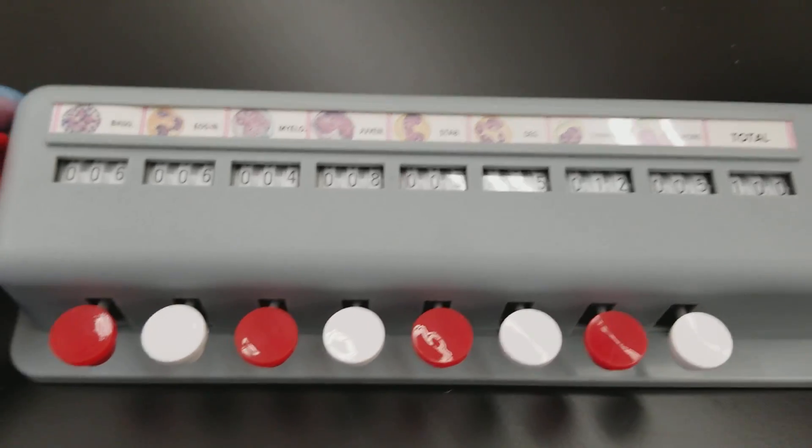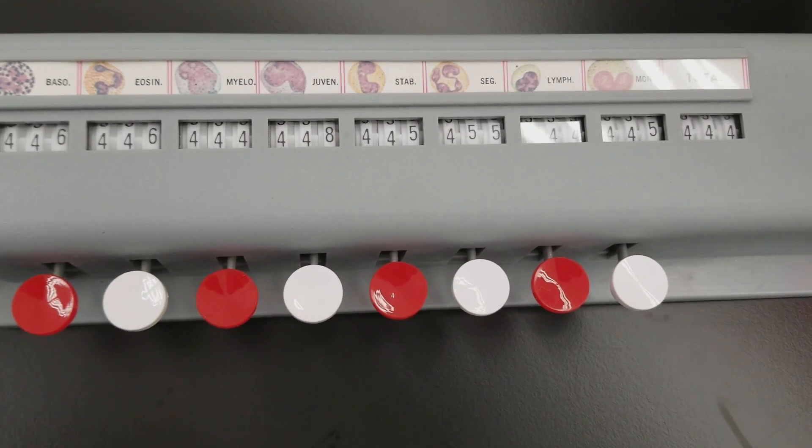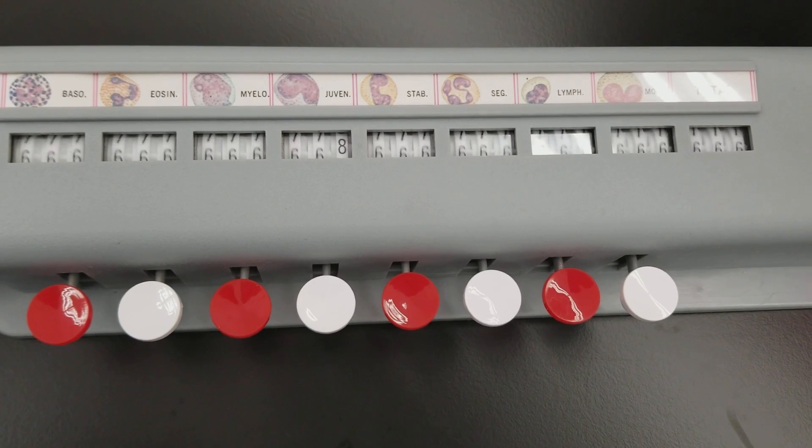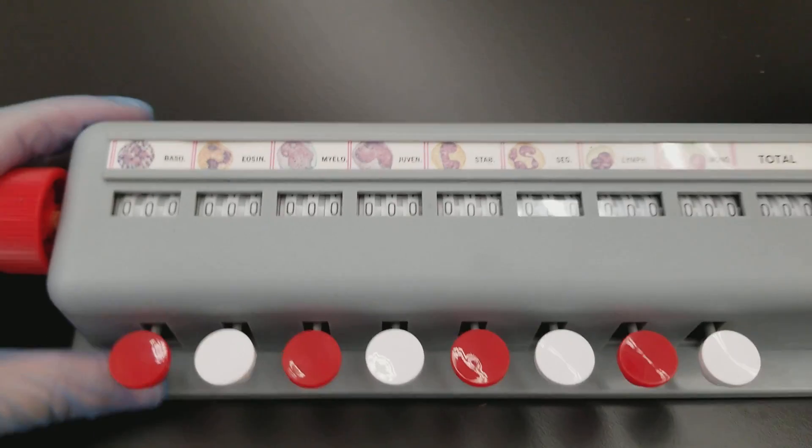So when you want to reset it, you just turn the knob. It starts to turn the dials. It's going to keep on dinging, that's okay. And then when you get back to zero, you leave it alone. And that's it.